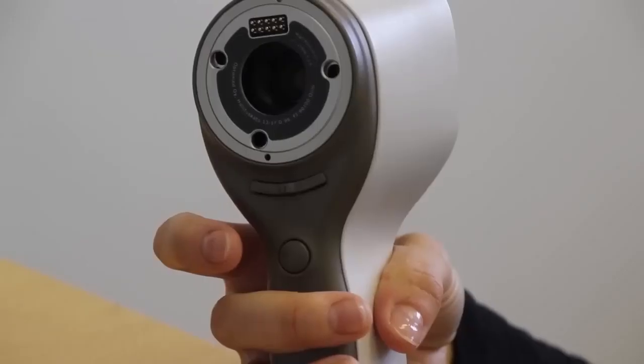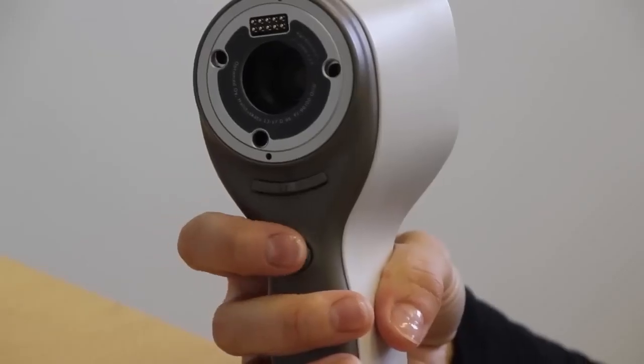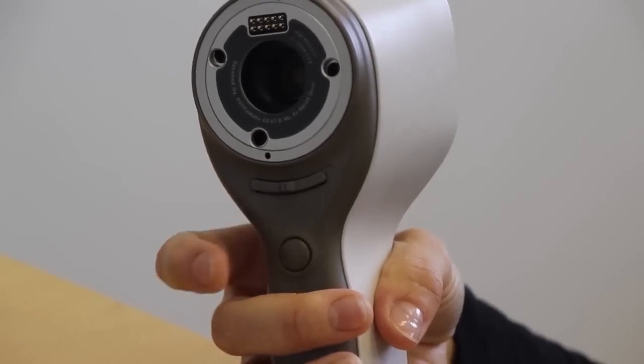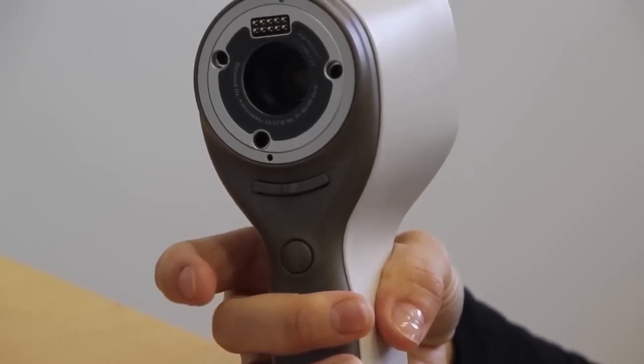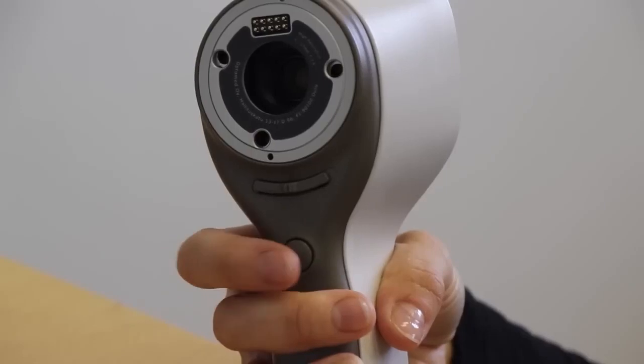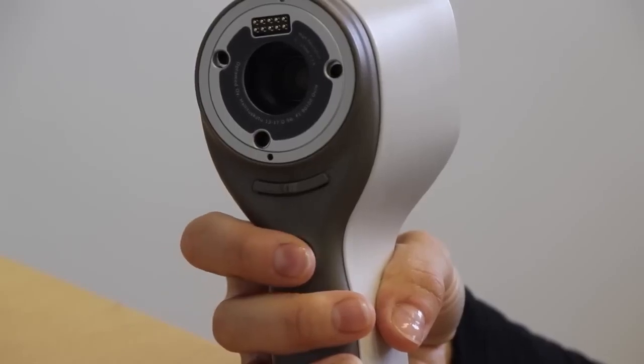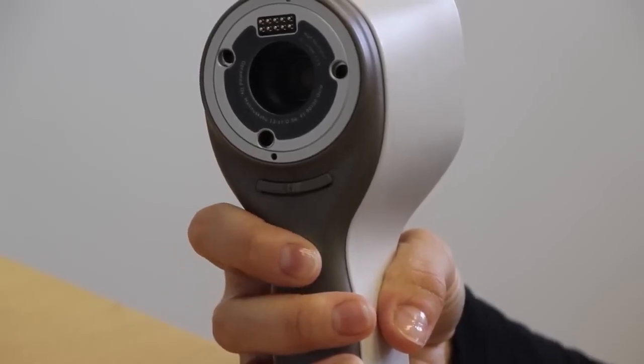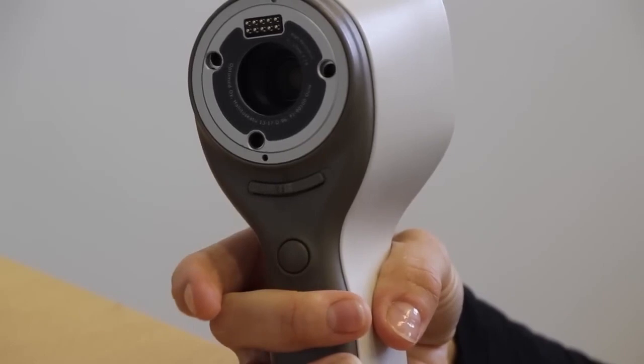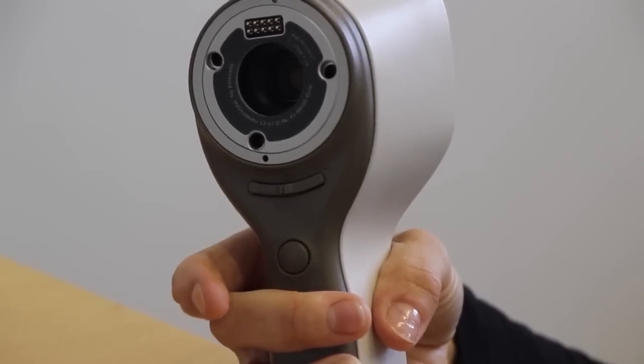With normal shoot mode, the shutter button operates like a standard digital camera with a step trigger. Pressing the button halfway first focuses the image and the image is taken when the button is pressed all the way down.